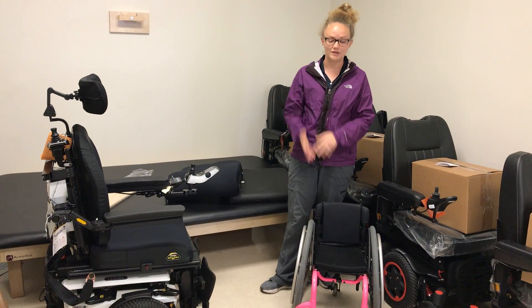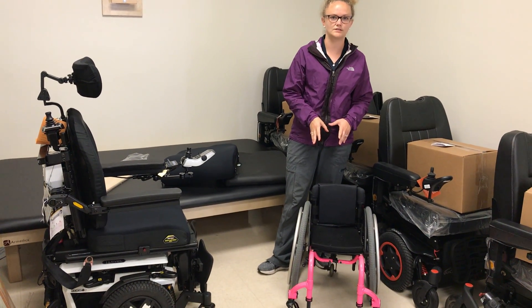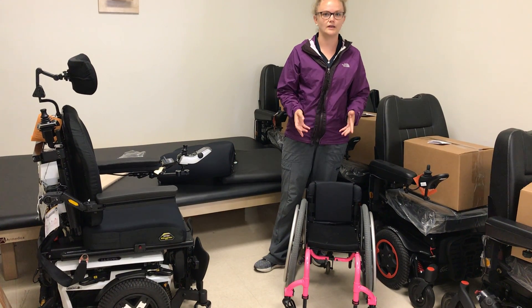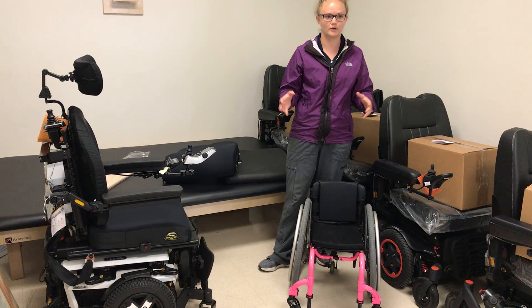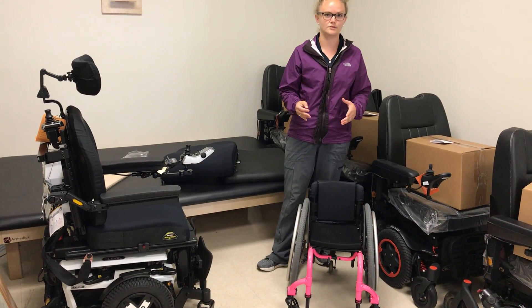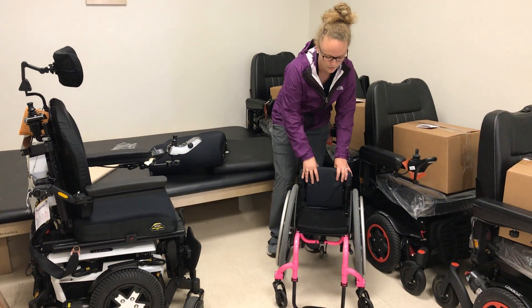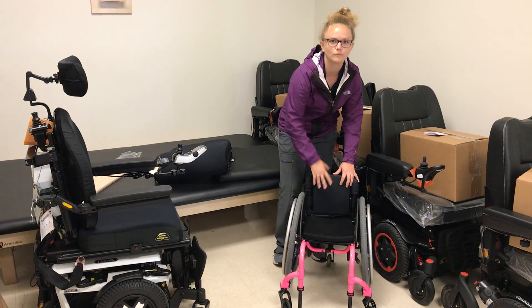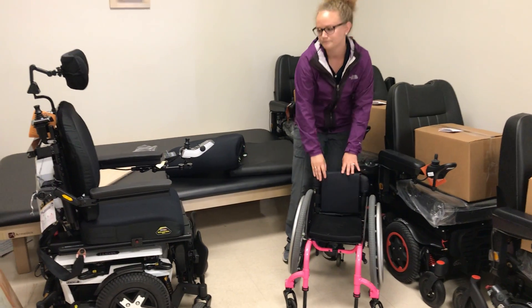Especially in pediatrics, it's very important to consider that last aspect of engaging with their peers, as it's super important to their overall development. So this is a pediatric chair, which would allow them to be on level with their peers and engage with them.